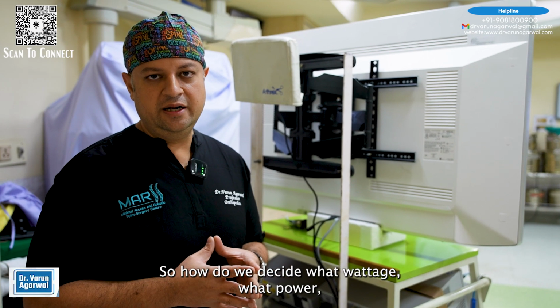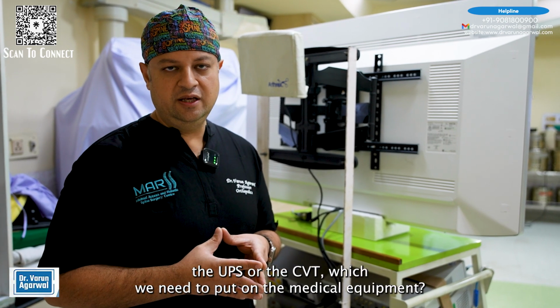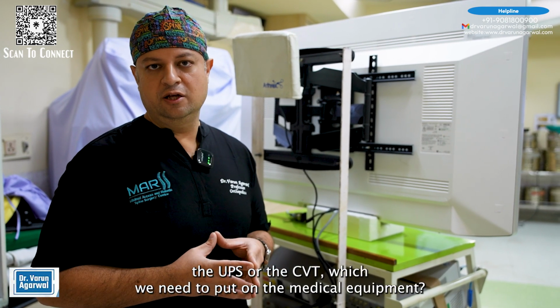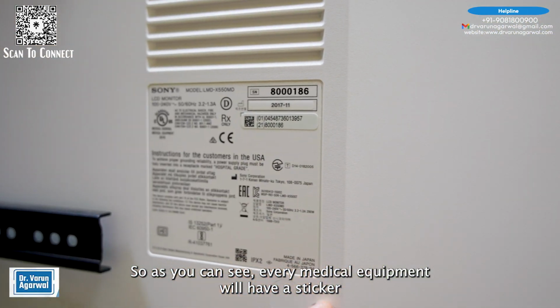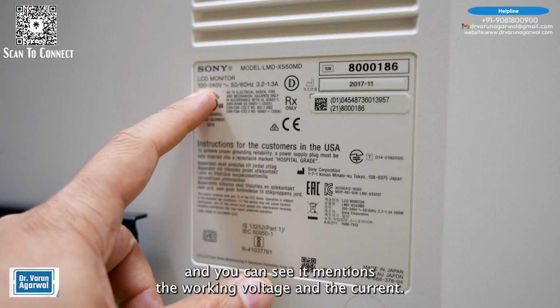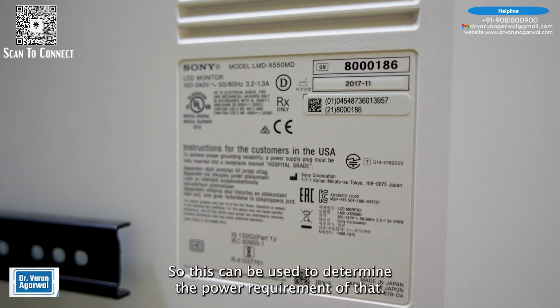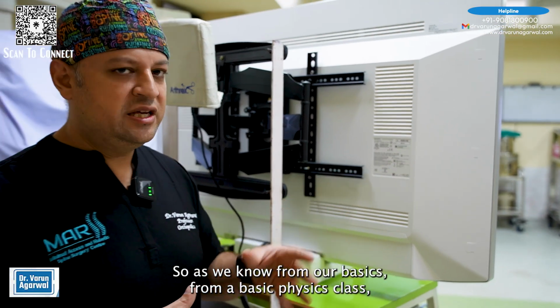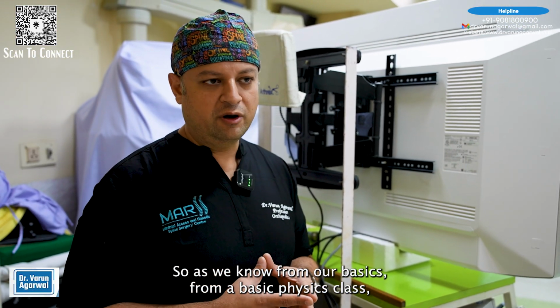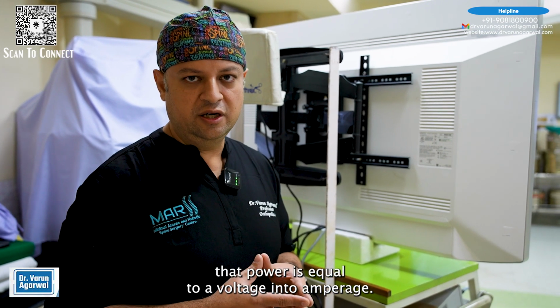So how do we decide what wattage, what power the UPS or the CVT which we need to put on the medical equipment? As you can see, every medical equipment will have a sticker, and it mentions the working voltage and the current. This can be used to determine the power requirement of that medical equipment. As we know from basic physics class, power is equal to voltage into amperage.